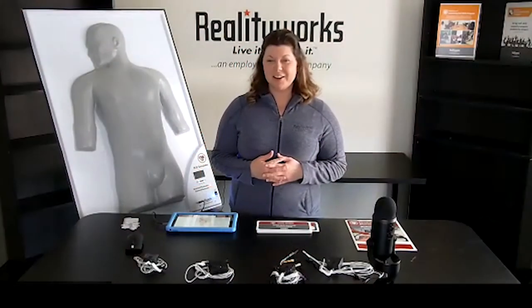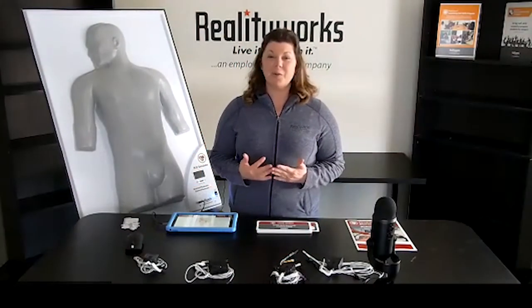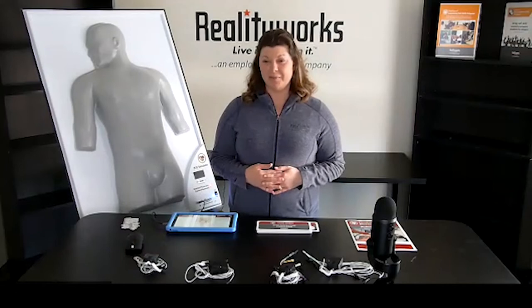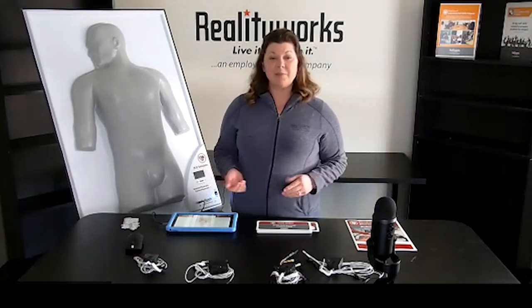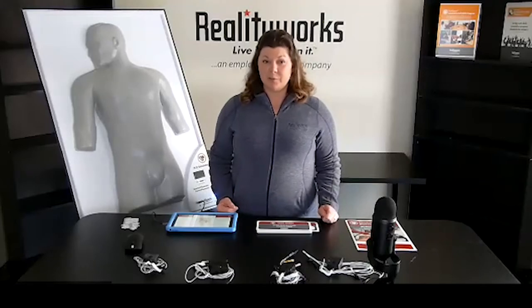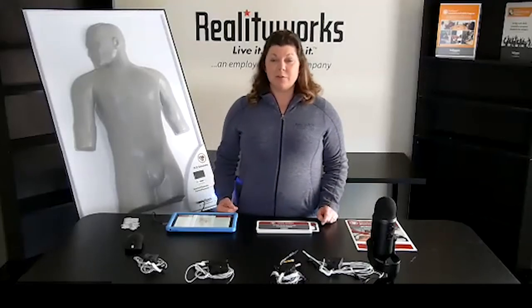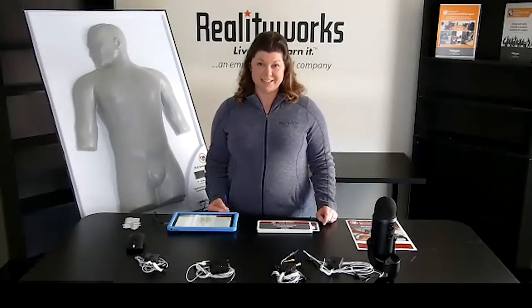Hi, I'm here to talk to you about RealityWorks' award-winning ECG simulator. We saw a need in the market for a hands-on simulator to help students with lead placement and accurately reading rhythms. The simulator can be used in common classes like EMT, paramedic, and nursing.